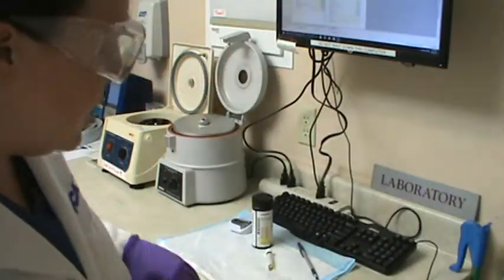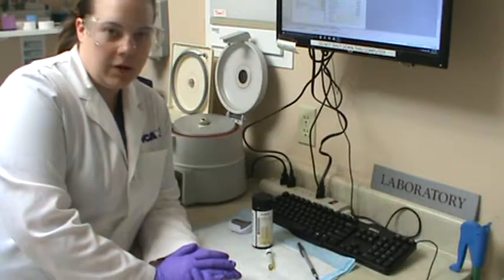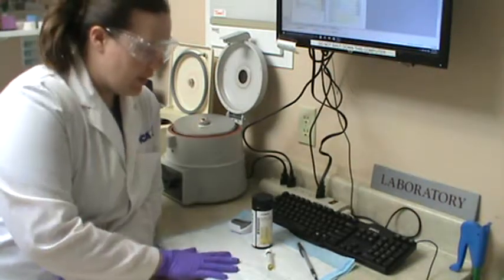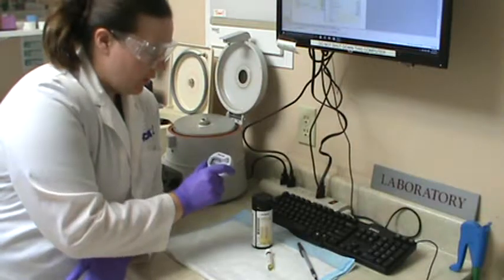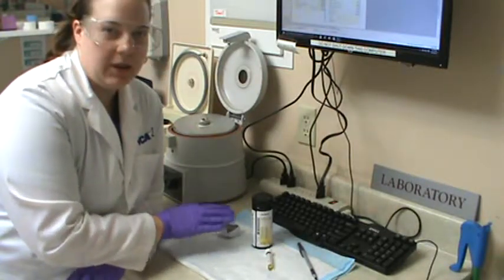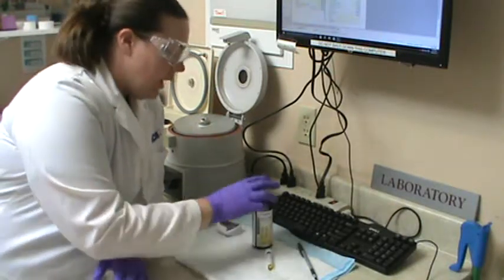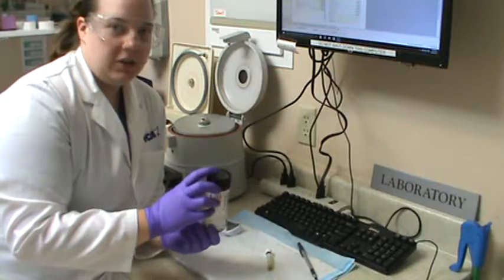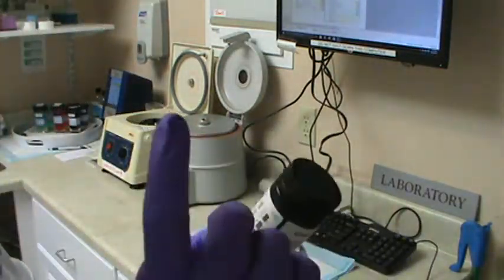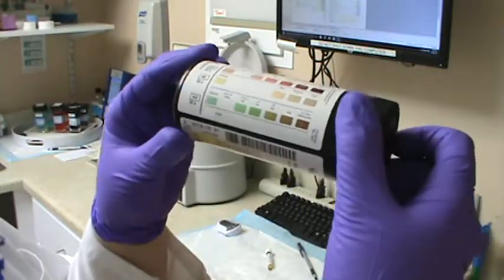So continuing on with task 20, we're now going to move on to looking at some of the chemical observations in our urine sample that we collected. I have a clean wee pad. I have a timer because some of these range from reading at 30 seconds up to 120 seconds. I have my urinalysis reagent strips, which is actually very useful. You put a drop of urine on each of the little squares on the strip, and as you can see, you can get a whole lot of information.